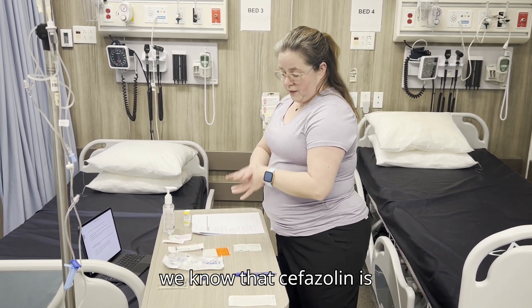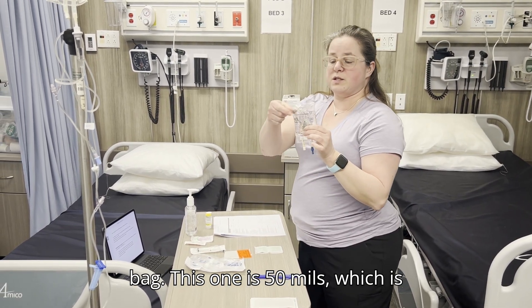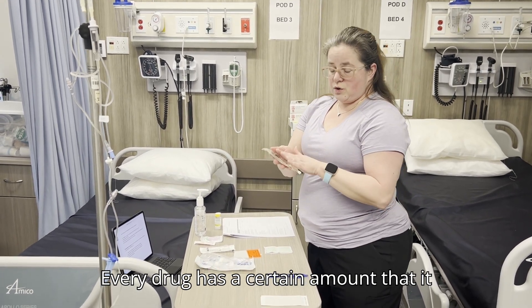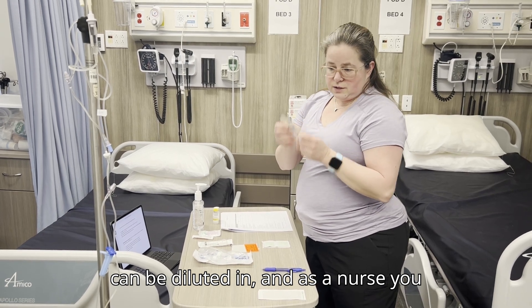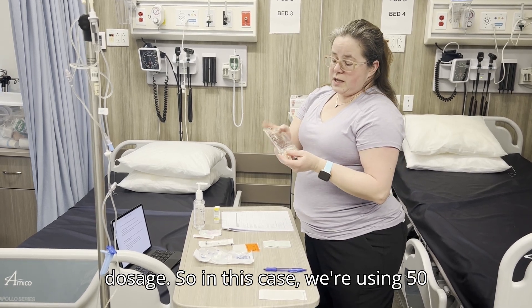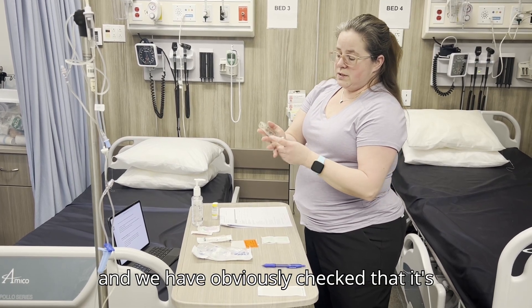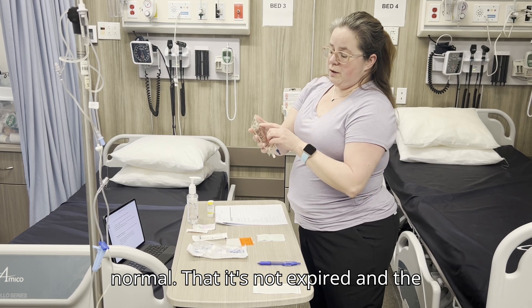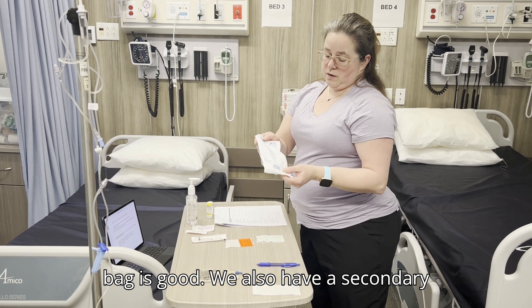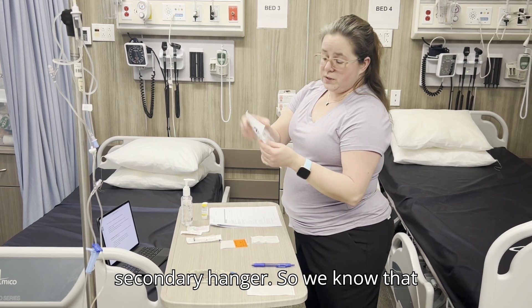Cefazolin is compatible with normal saline, so we have a normal saline mini bag — this one is 50 mils, which is appropriate for this dose. Every drug has a certain dilution volume, and as a nurse you need to look those up as they're individual per medication and dosage. We've checked that it's normal saline, not expired, and the correct volume. We also have a secondary set with no ports and a secondary hanger.